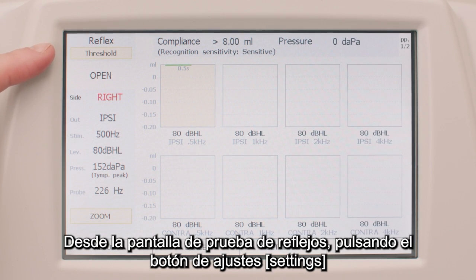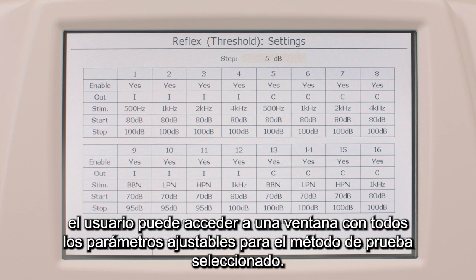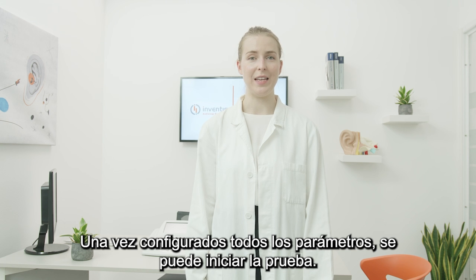From the reflex test screen, by pressing the function button settings, the operator can access a window with all the adjustable parameters for the selected test method. After having set all the parameters, it is possible to start the examination.